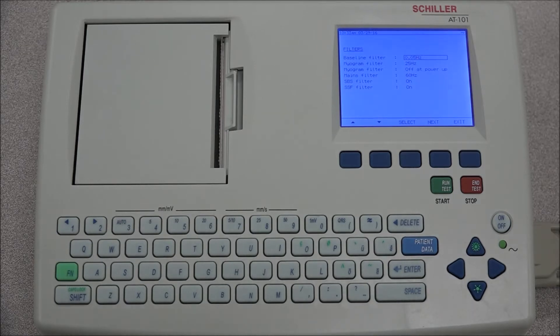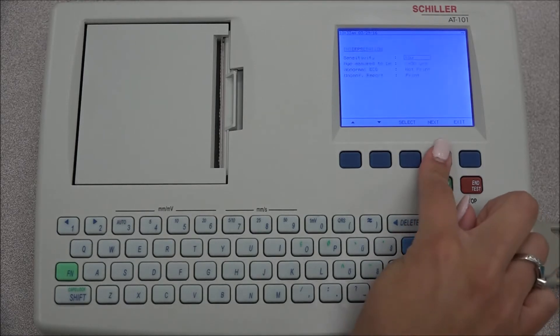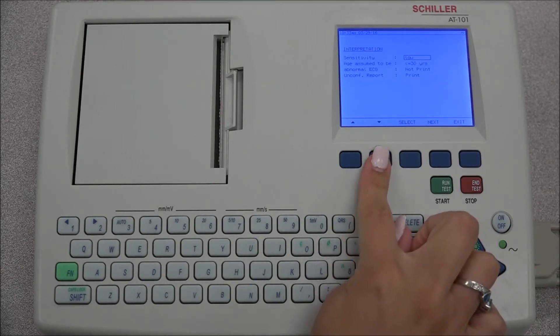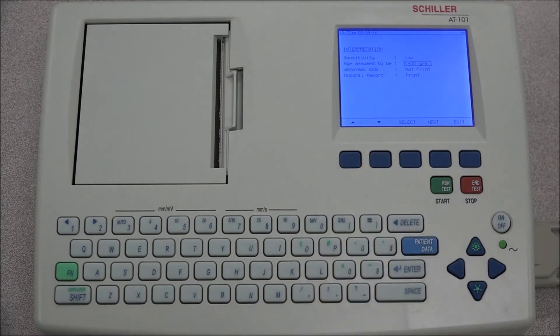If the interpretation is installed on the device, the interpretation tab will appear. The interpretation settings will enable the user to determine whether or not certain comments will be added to the interpretation statements on the ECG printout.